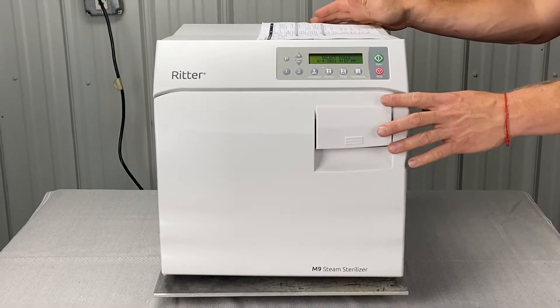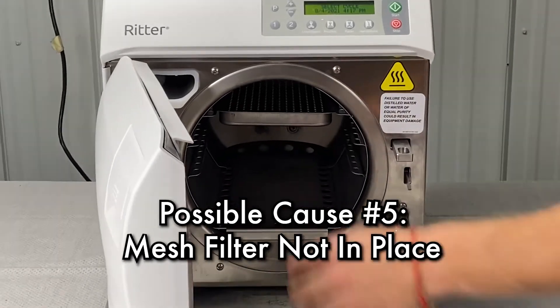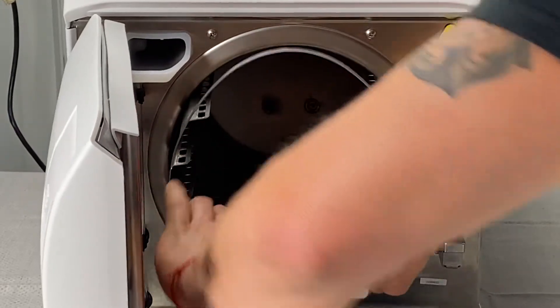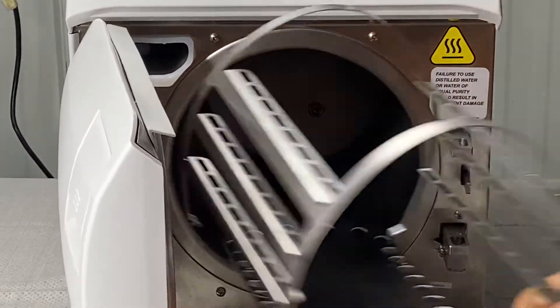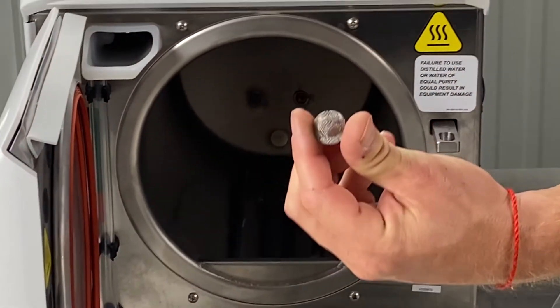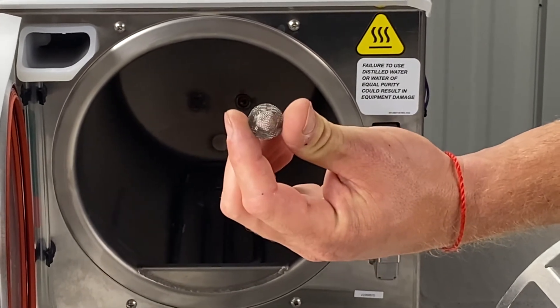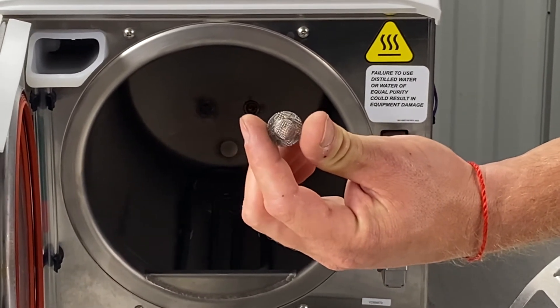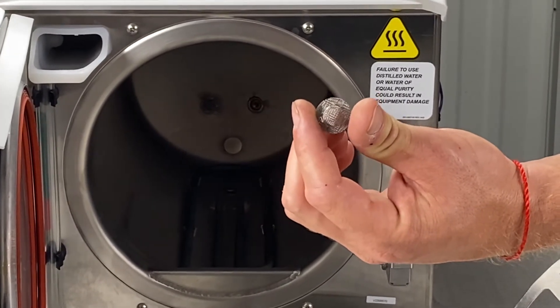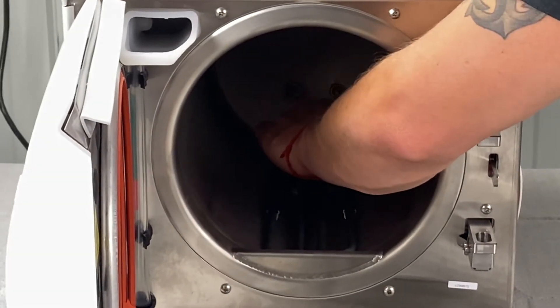Next will be the mesh filters not in place. The mesh filter is inside the chamber. You're going to want to make sure this is clean. If it's not clean, rinse it with Speed Clean, a toothbrush, and some distilled water. Hold it up to the light to make sure you can see through it, then reinsert. If it was clogged, that could have been the issue — run another cycle. If the error persists, we'll move to the next phase.